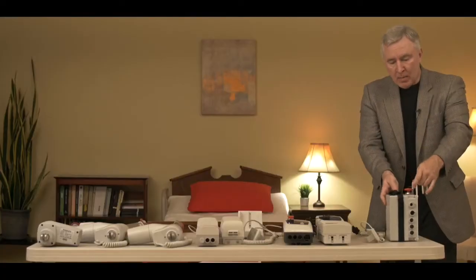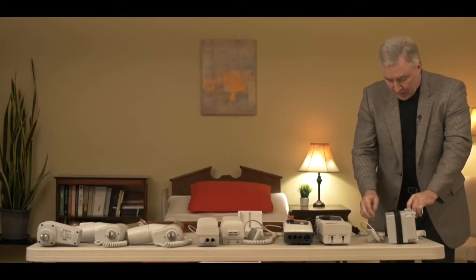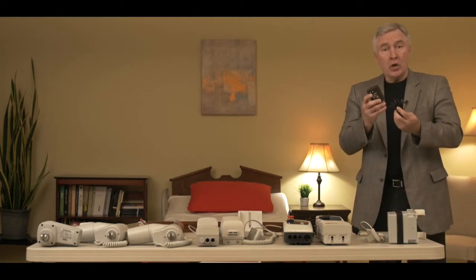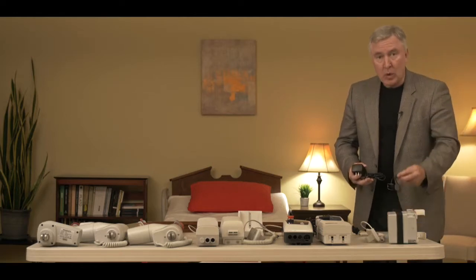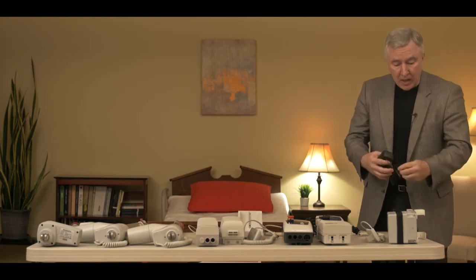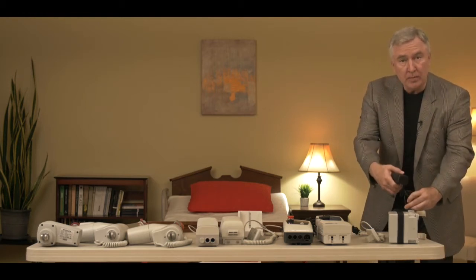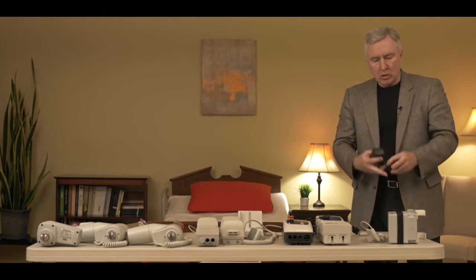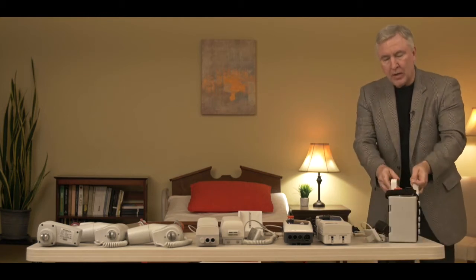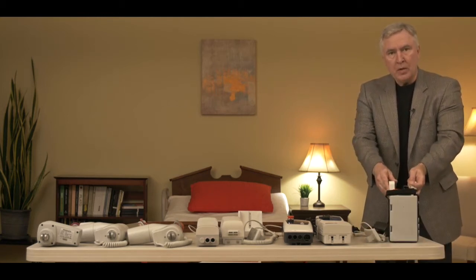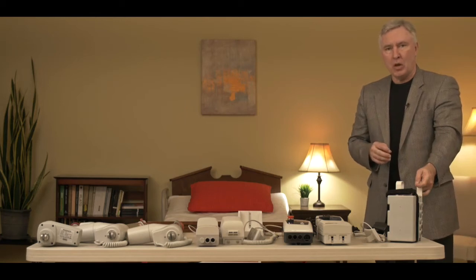Style one can be identified quite easily when you notice that the charger is a black charger that actually requires an adapter to plug into the control box to charge it. So if you have a black charger and a control box that's a complete square, then you know you have the first style of Best Care electronics.